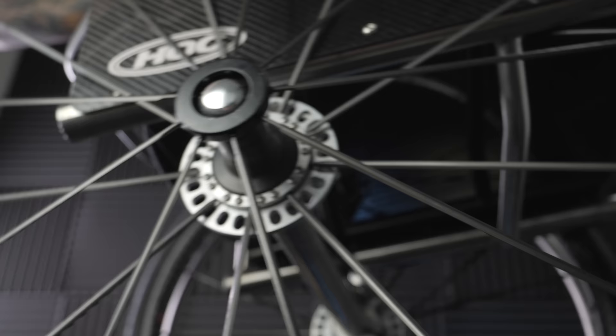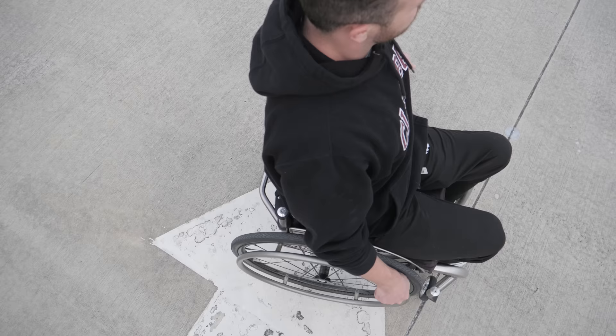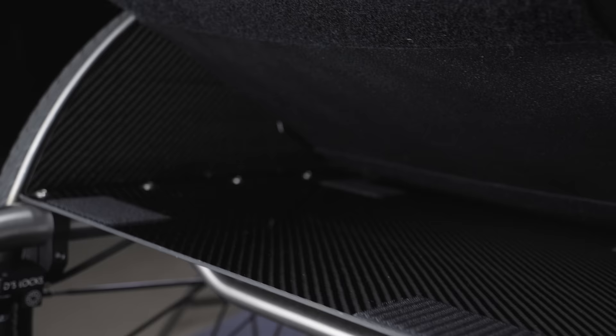I'm back in Atlanta and ready to give my final thoughts — though there will be another video that's a complete review, so stay tuned for that. I've been using this wheelchair for about four weeks now and the build quality is absolutely excellent — the measurements were on point. I've only had to make two minor adjustments to get it exactly how I want it, compared to my previous chairs that I had to mess with for at least a month. This is absolutely awesome.